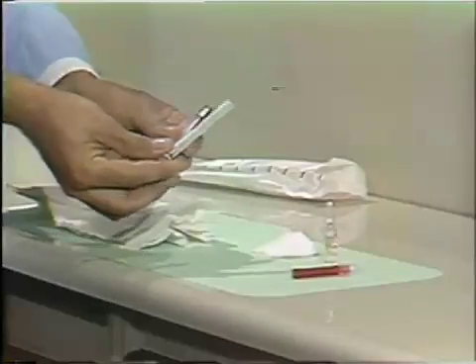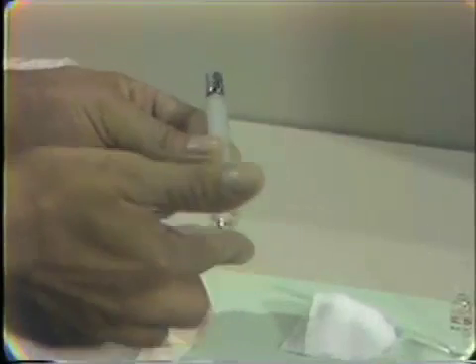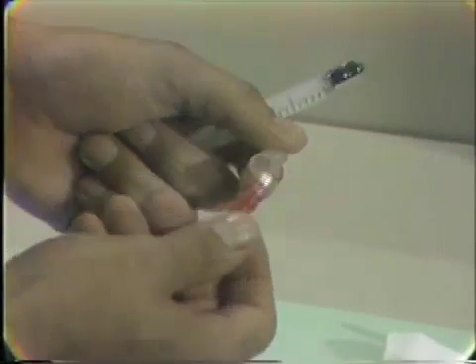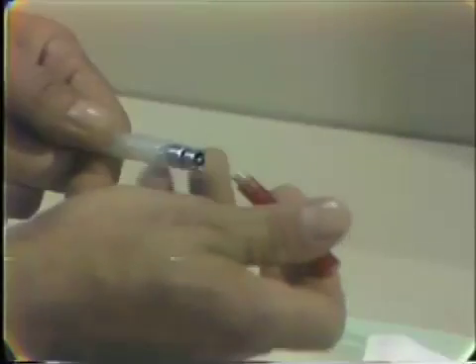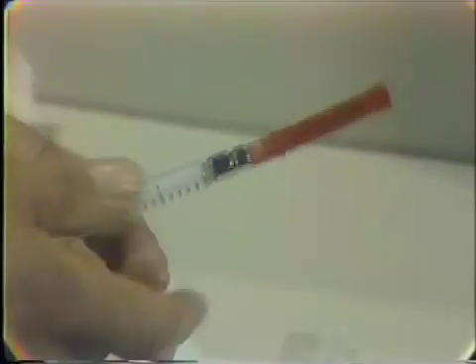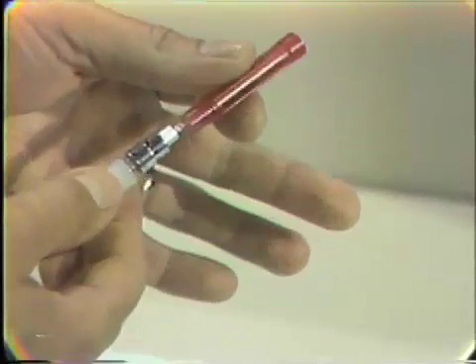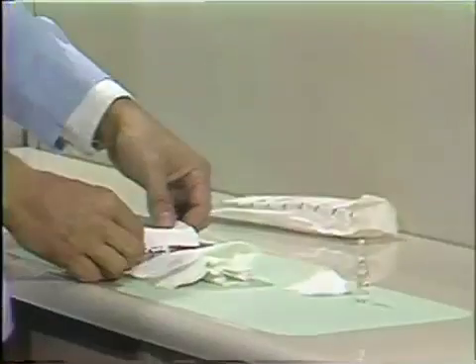Take the syringe out without touching the etched glass barrel — insert it inside where it can remain sterile. Snap the needle off with a twisting motion to get the clear plastic end off. Slip it on the end, turn it in, and lock it into position. If you wish, at this point you can pull the red part loose so that it's on there relatively easily, and then lay your syringe on your napkin again.